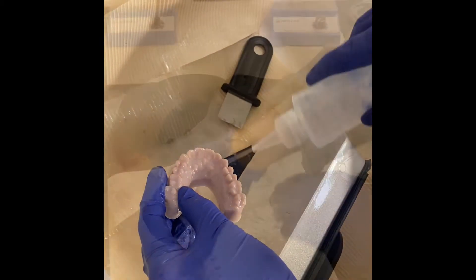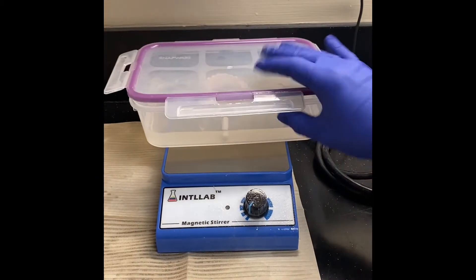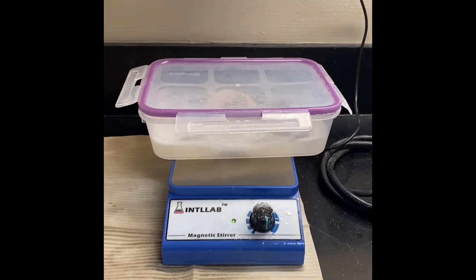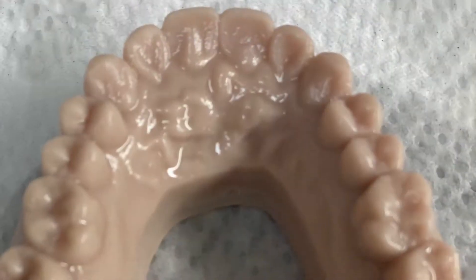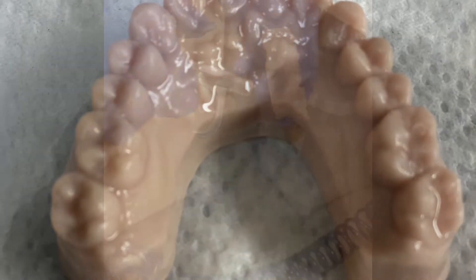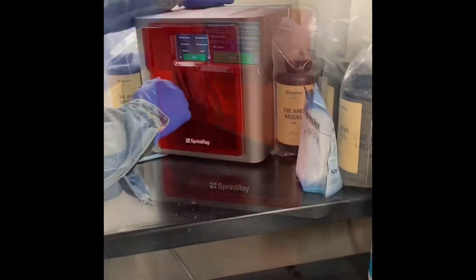The model is then rinsed and placed in an alcohol bath for five minutes. Here it is clean from the alcohol bath. We dry it off and place the model in a light curing box for 25 minutes. This cures the model, making it stronger.